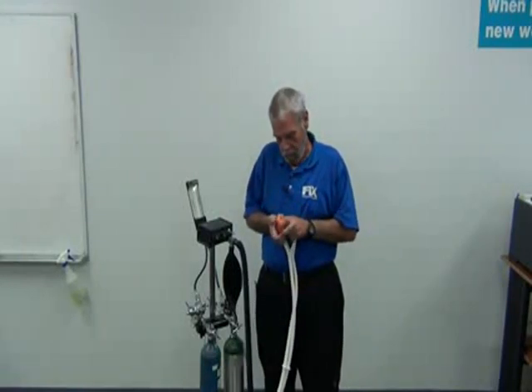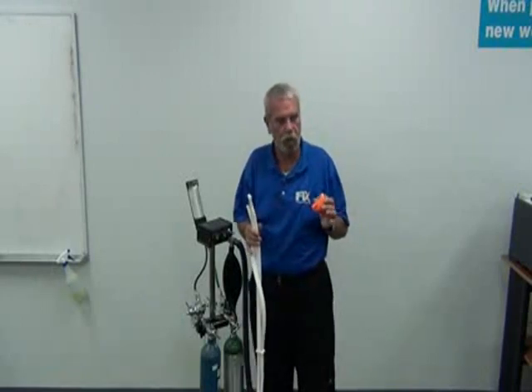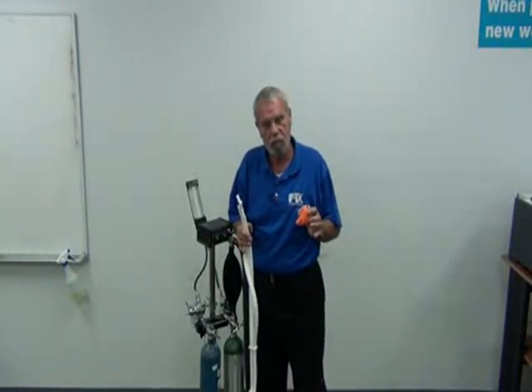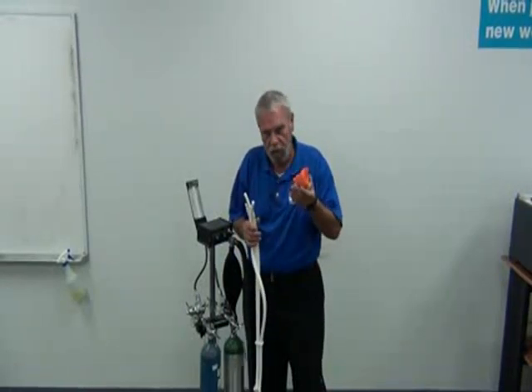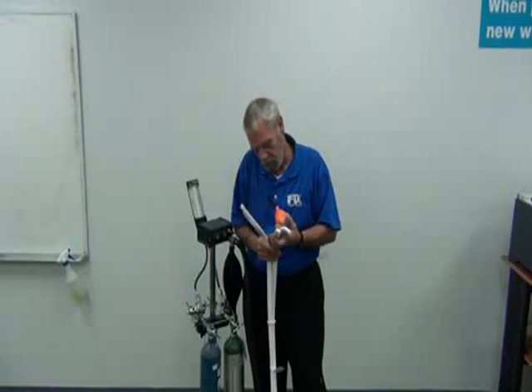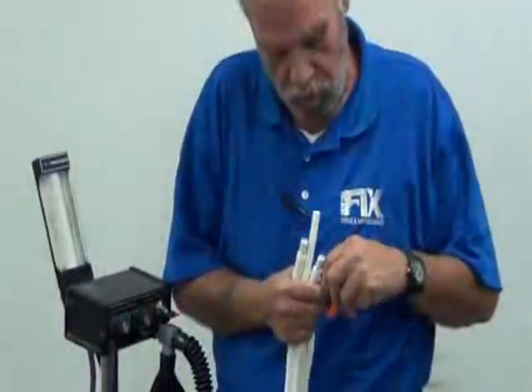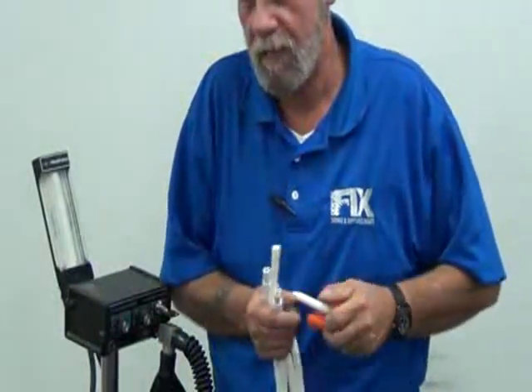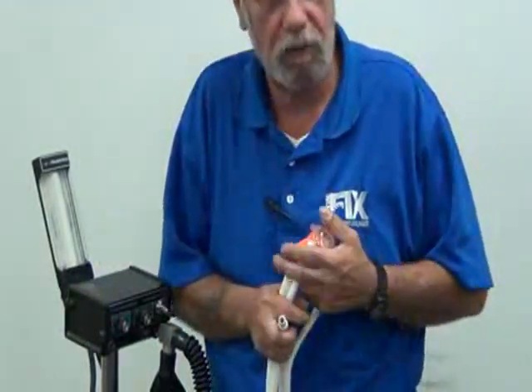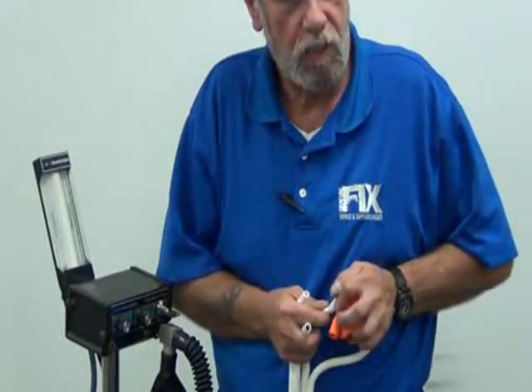Now, several doctors have masks that are flavored. This is great for orthodontists and pediatricians, pediatric dentists. The flavor, they'll smell like cinnamon, they'll smell like vanilla. It's a great way to make the patient accept using the gas. It will also ensure that the patient brings their mask back to use during their procedure. You put it in a Glad bag and give it to the patient, and they'll bring it back for the next procedure. It cuts down on your expenses.